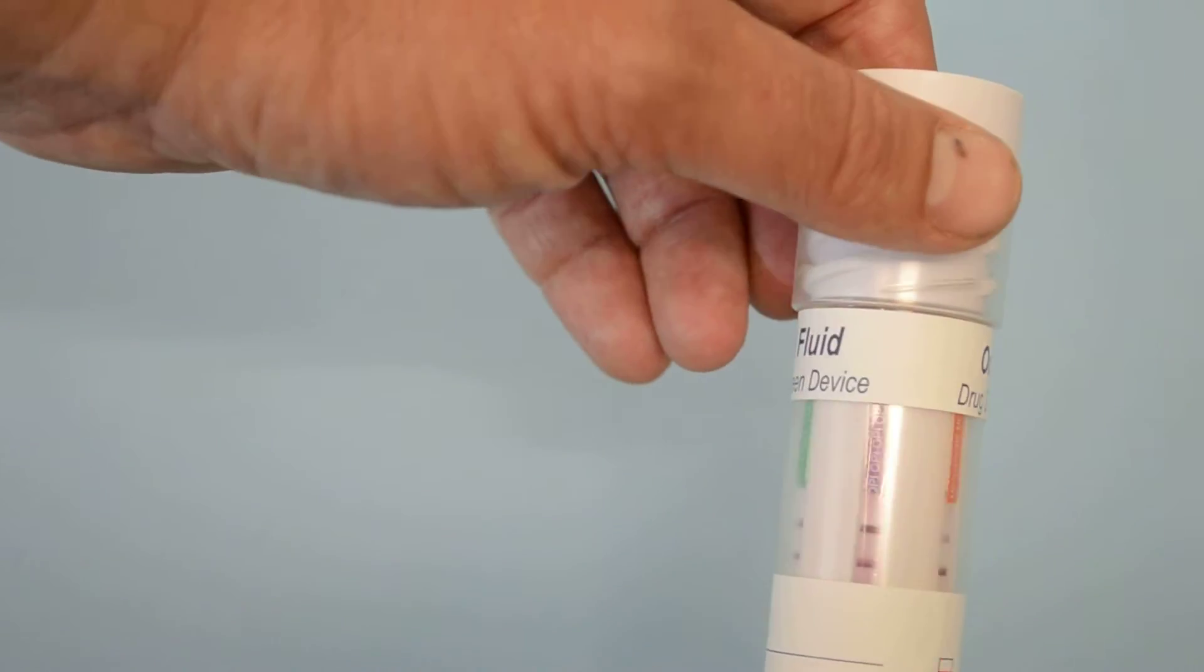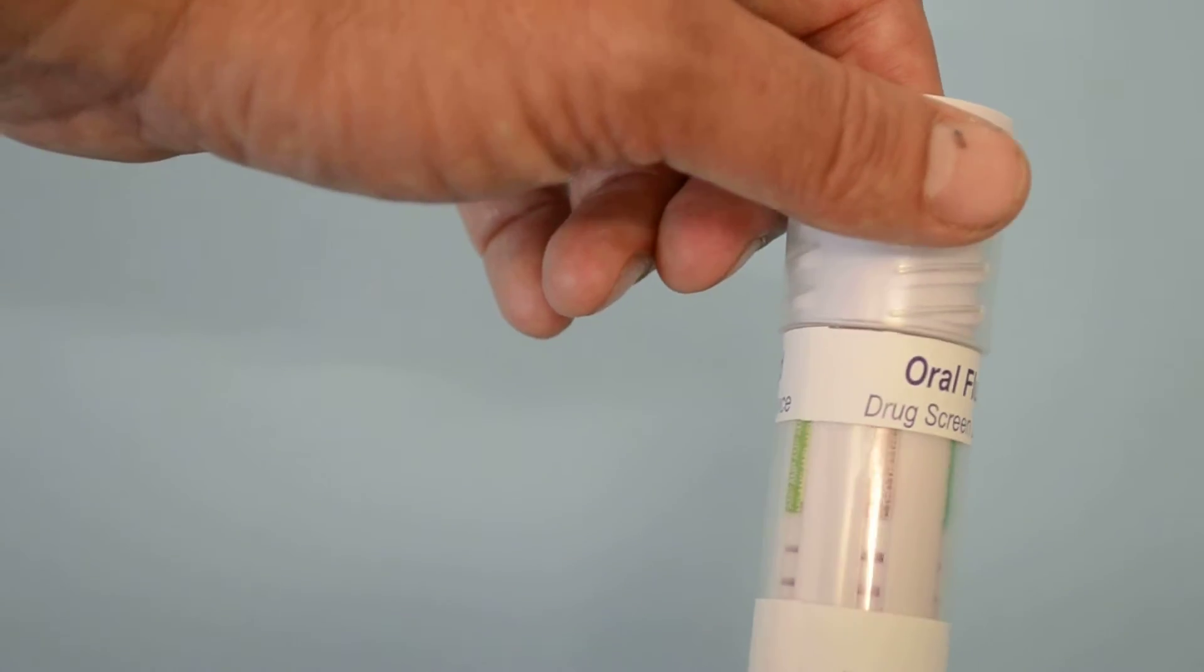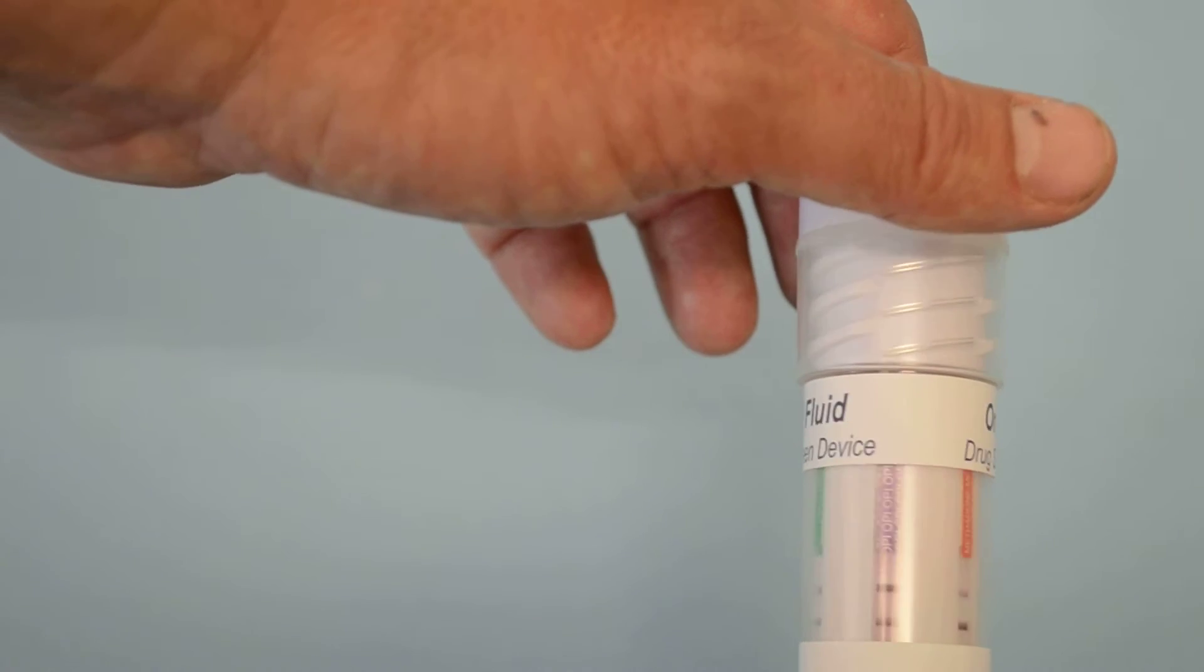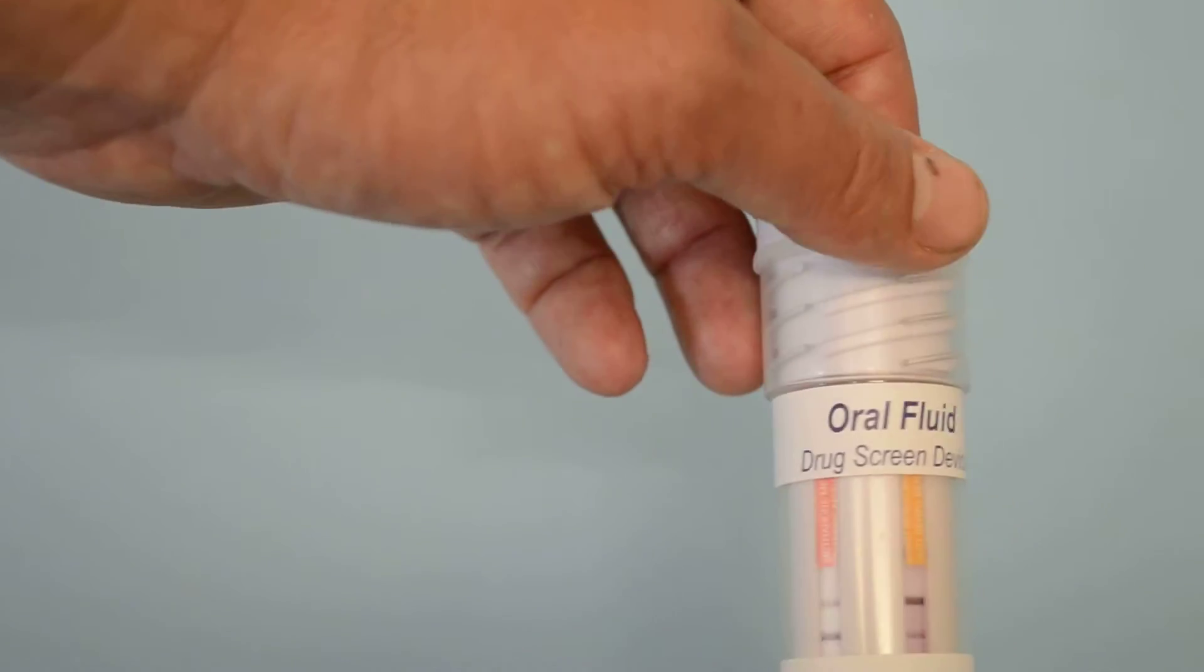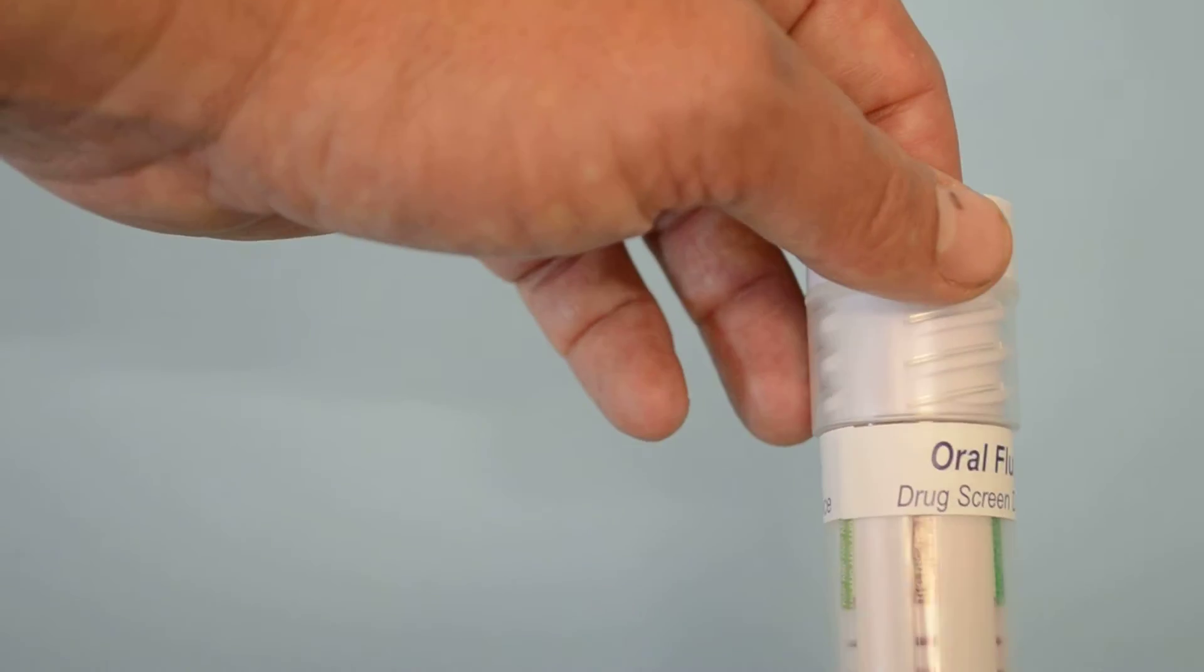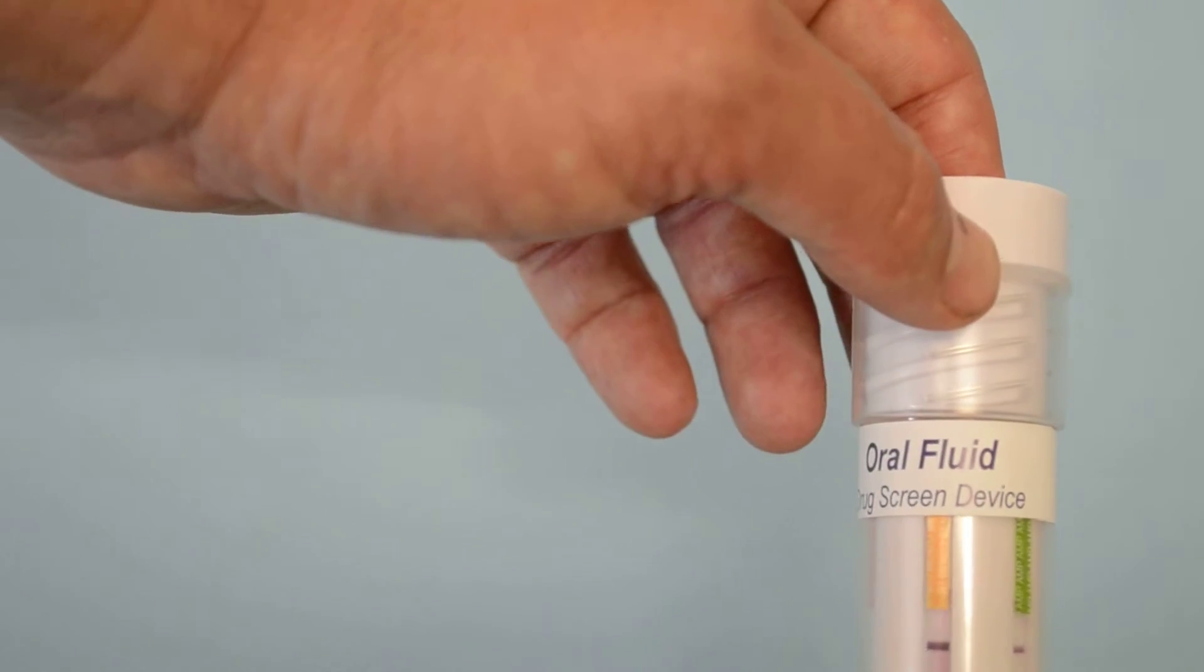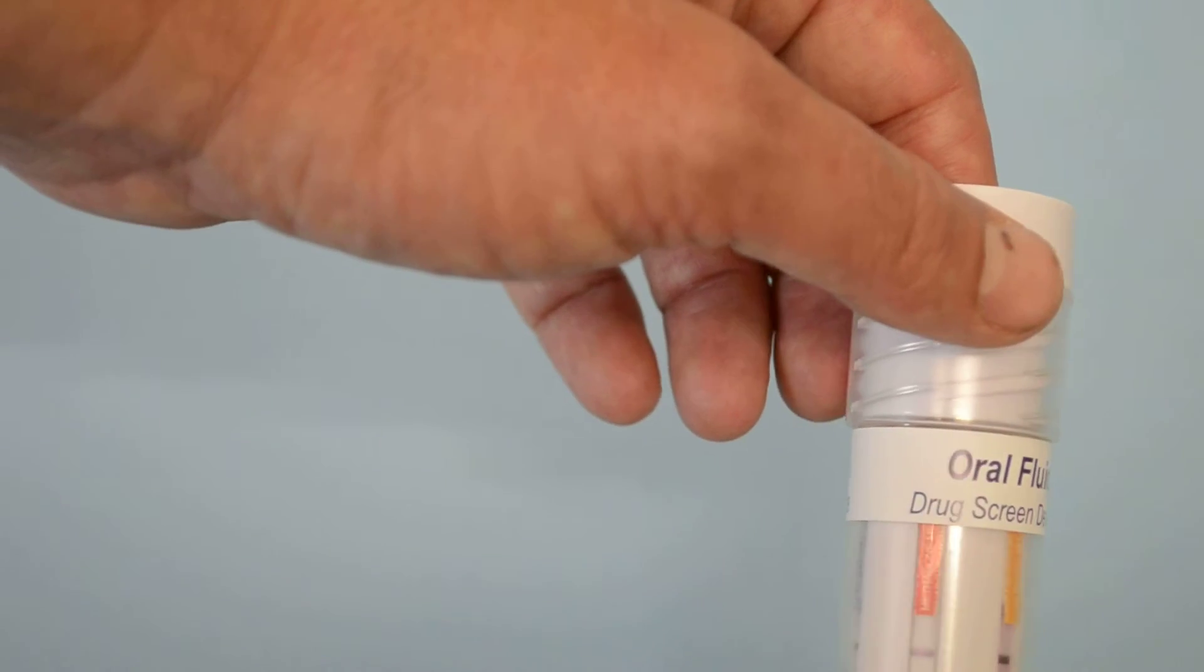All negative results showing on this one. Nice clear white backgrounds. The results can either be photographed as a record or photocopied if it's rotated around in a machine. They do become fixed and stable for a period of 24 to 48 hours.